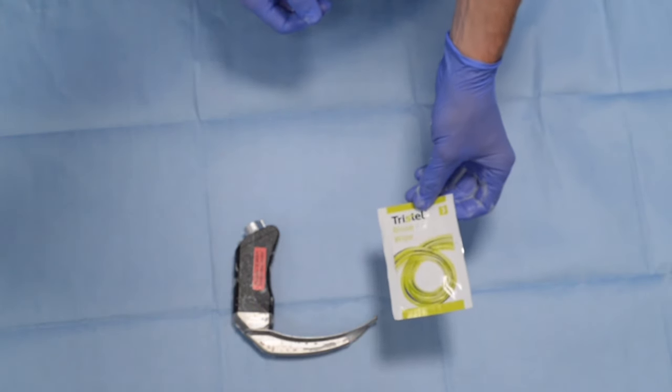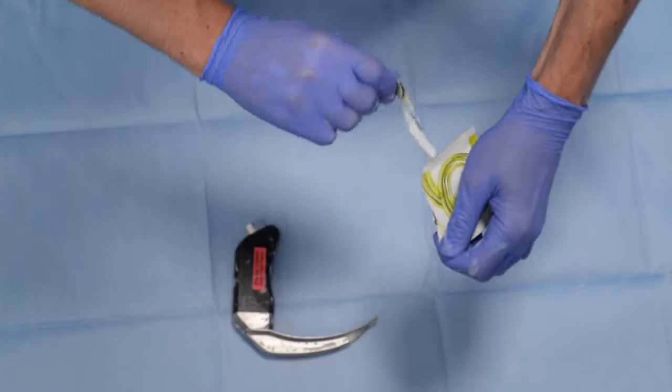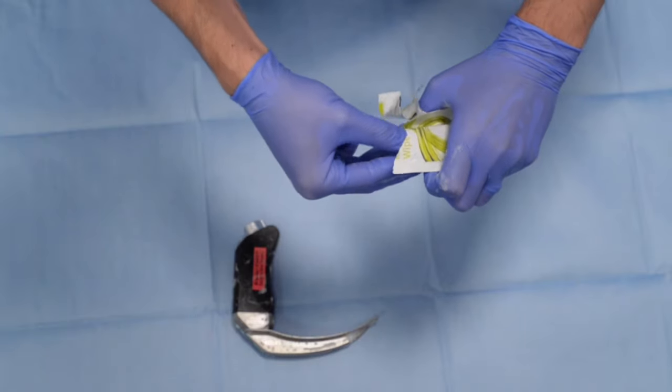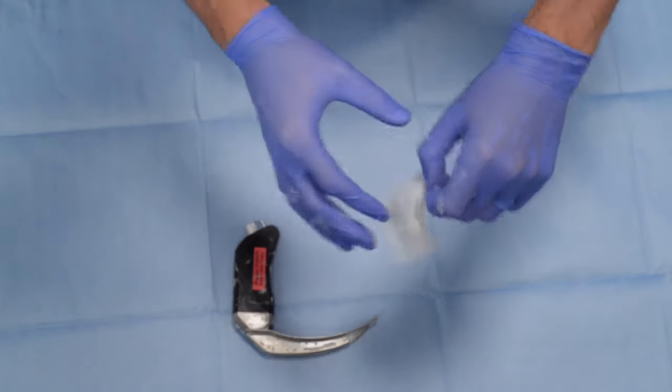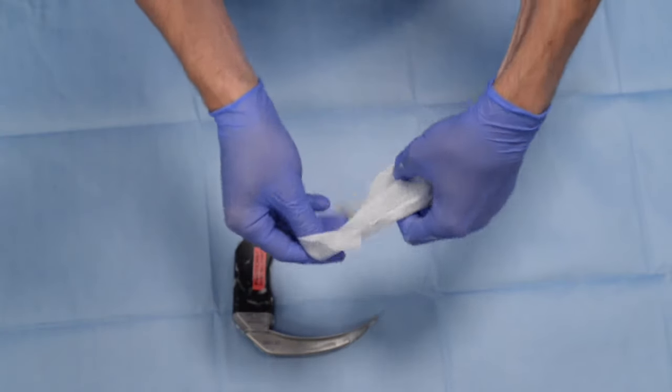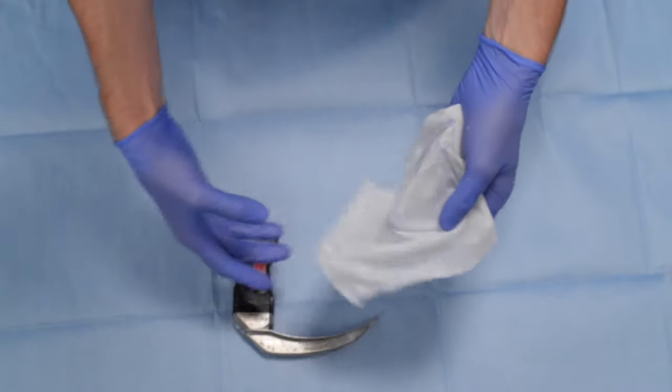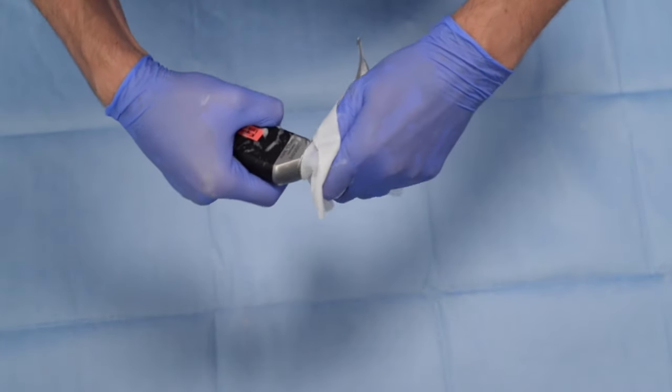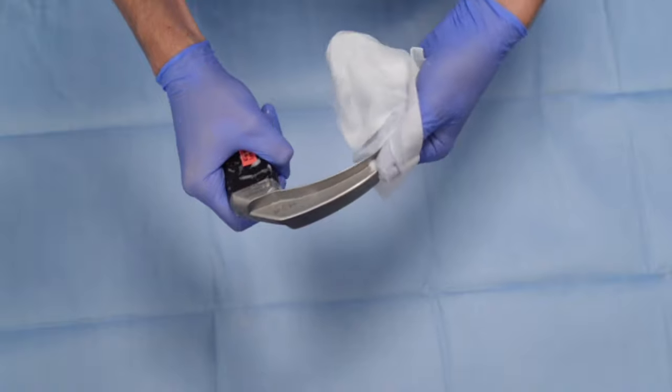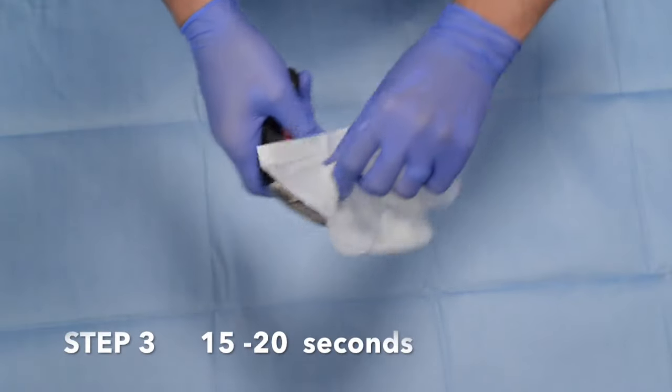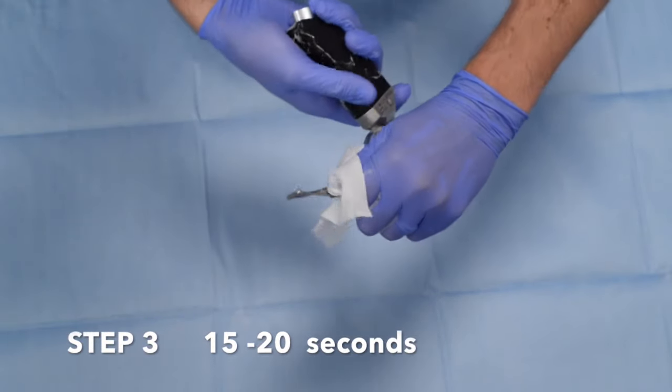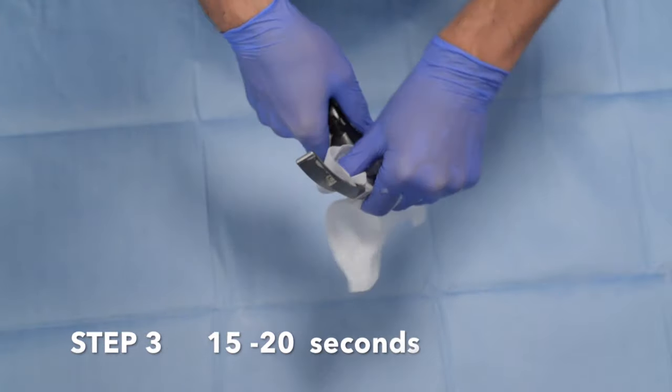The final stage is with wipe number 3. Again, continue to wipe the blade. Do this for 15 to 20 seconds.